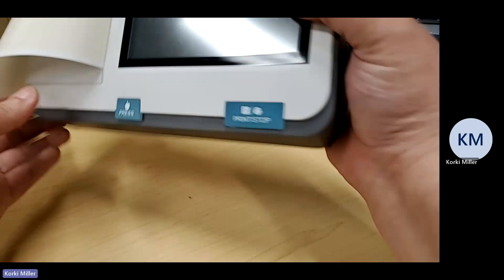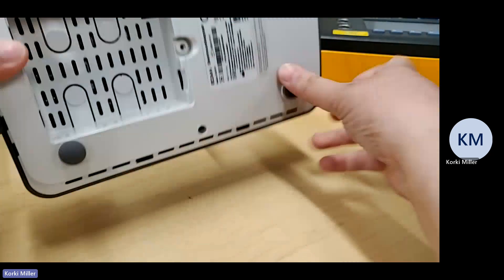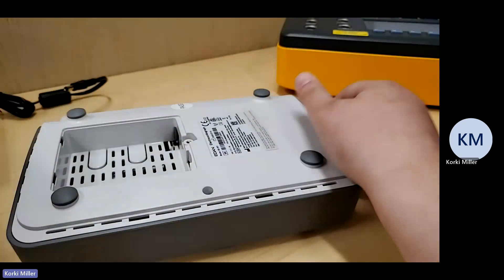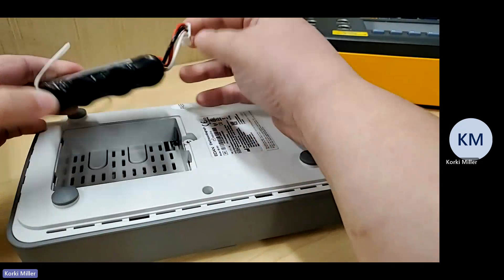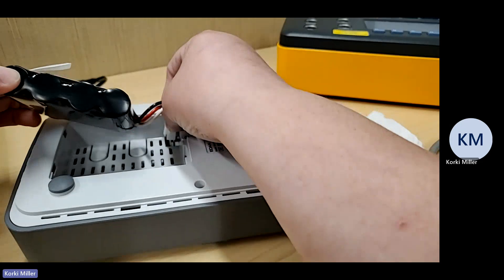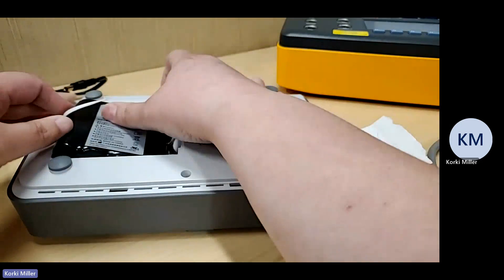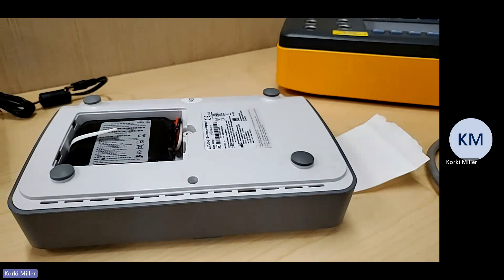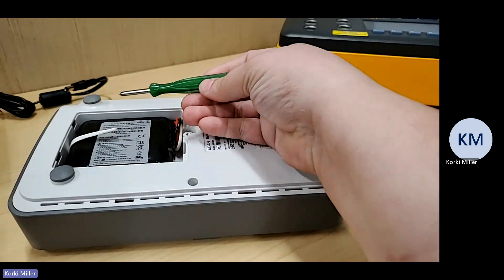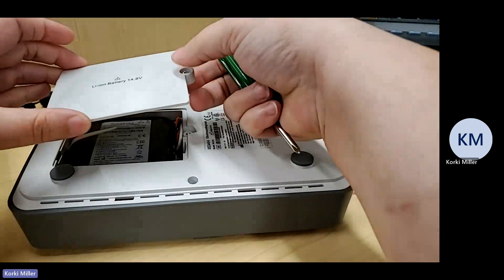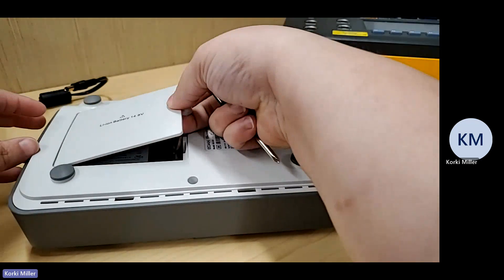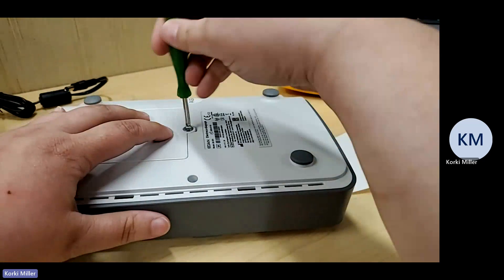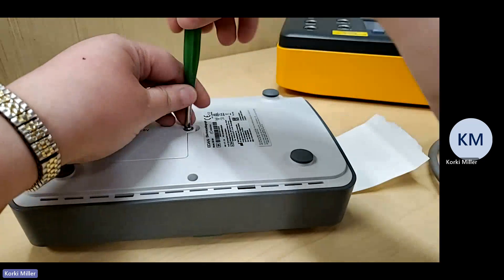For this, on the backhand side, this is where the battery goes. We're going to demonstrate how to put that in. The battery is here. It's going to be inserted like so. This gets pushed down. In your guides, you have a screwdriver. And this tiny little screw. It's only the one screw you need to worry about. And close this up. Push this down. Screw this in the place.